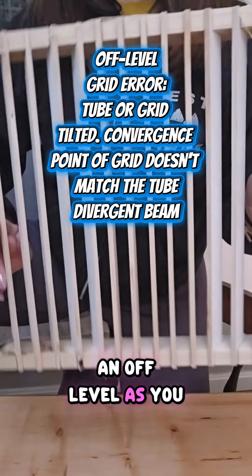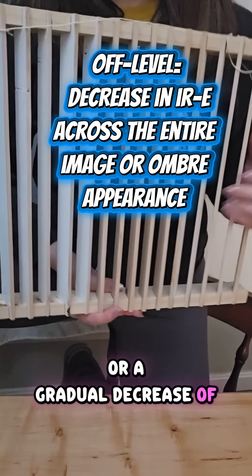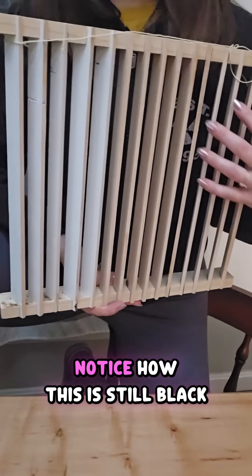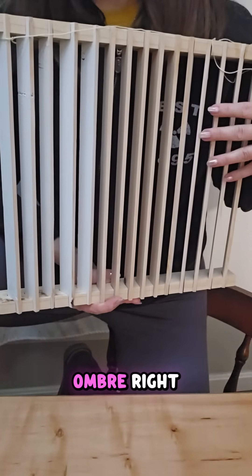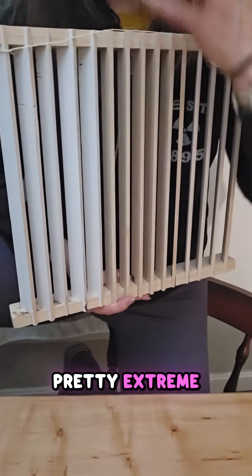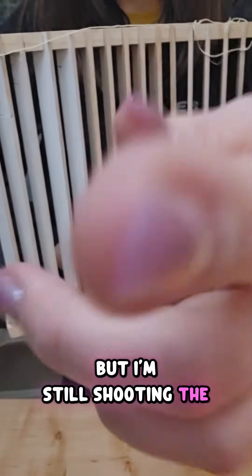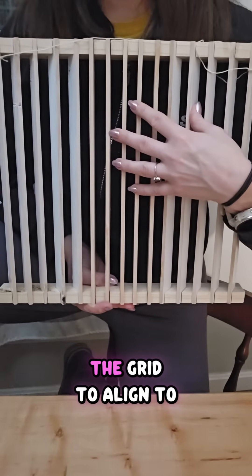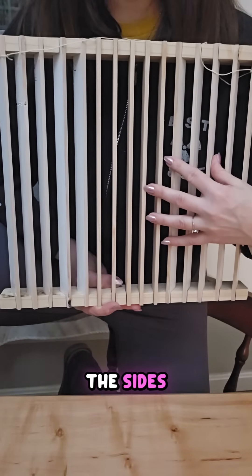An off-level error is going to create what I call an ombre appearance — a gradual decrease of IR exposure across the entire image. Notice how one side is still black, but this area starts to get white. It can be pretty extreme, because the convergence point is now over here but I'm still shooting the x-ray from right here — so I'm not at the convergence point. When I turn the grid to align to the x-ray tube, I still have a similar amount of grid cutoff on the sides.